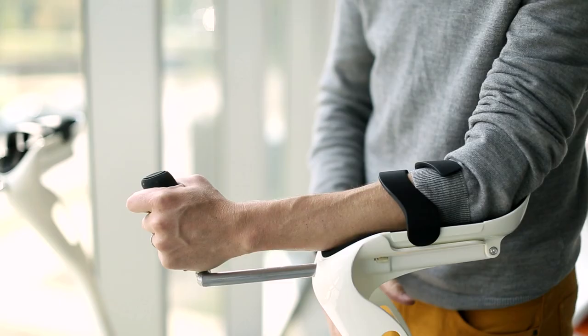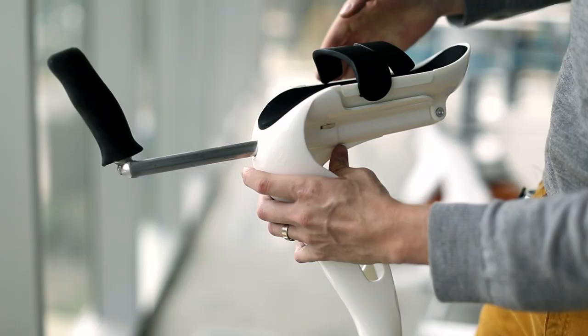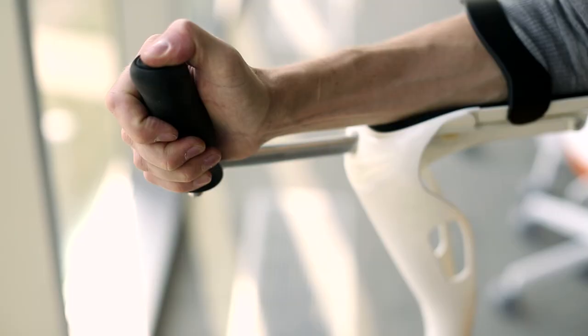The arm and leg are adjustable for someone that's 4'7" all the way up to 6'8" in height. The flexible arm straps make it easy to get in and out quickly. The cradle unlocks so that the user may reach up or down while still wearing the crutches.